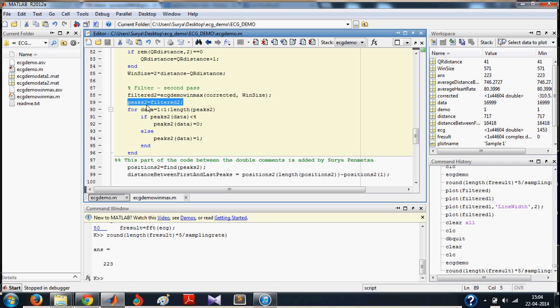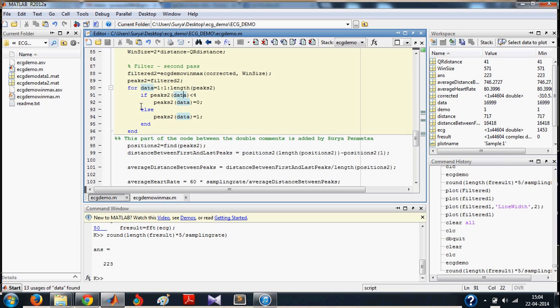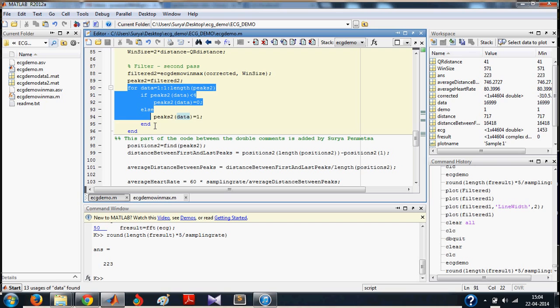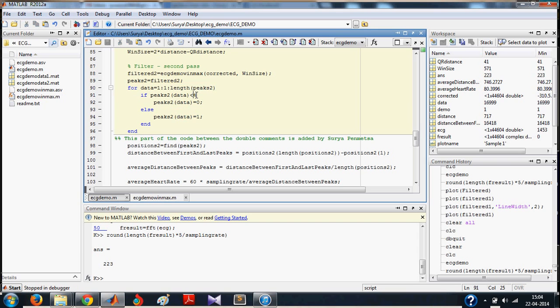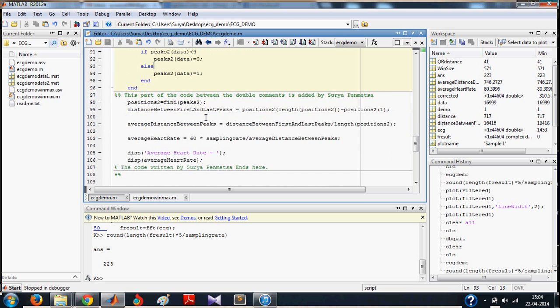Now, your peaks are in filter 2. Now, you do the same thing again. If the value is less than 4, you take it as no peak. And if the value is greater than 4, you take it as a peak.